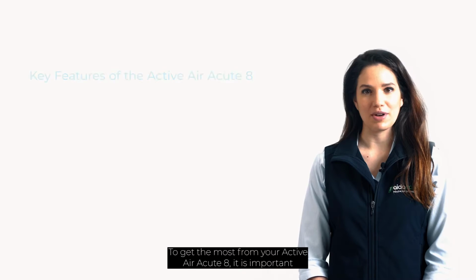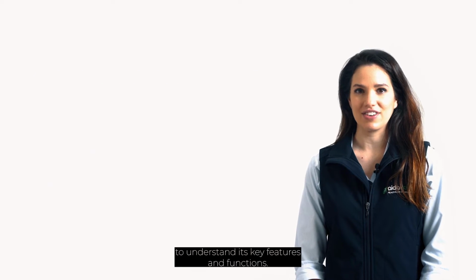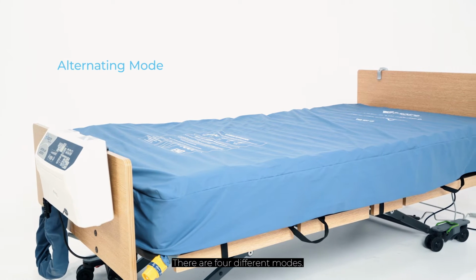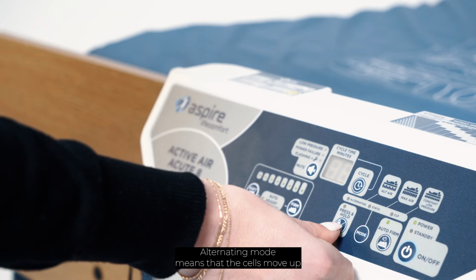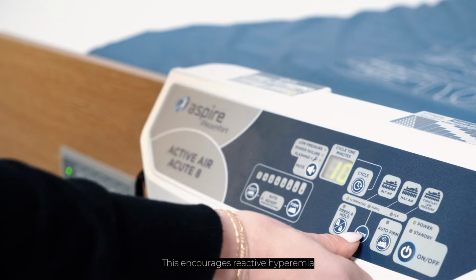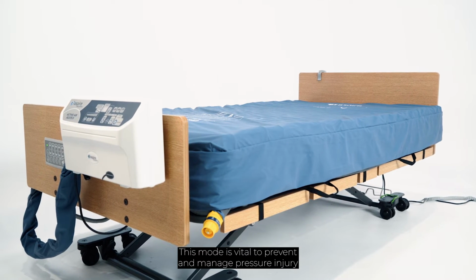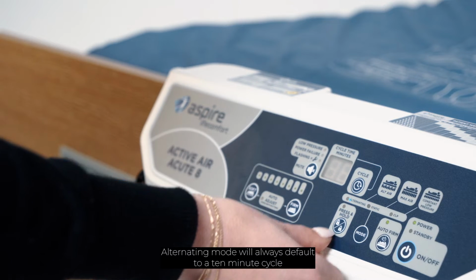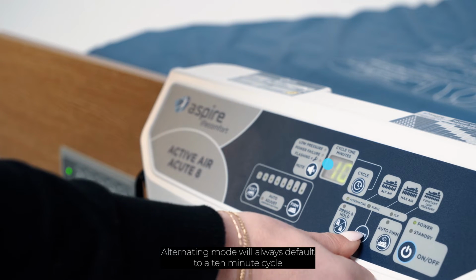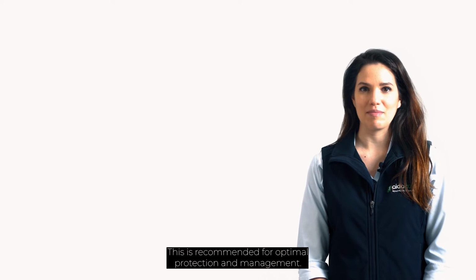To get the most from your Active Air Acute 8, it is important to understand its key features and functions. There are 4 different modes. Alternating mode means that the cells move up and down in a 1-in-3 pattern. This encourages reactive hyperemia. This mode is vital to prevent and manage pressure injury and should always be used for those at high risk. Alternating mode will always default to a 10-minute cycle on initial setup. This is recommended for optimal protection and management.